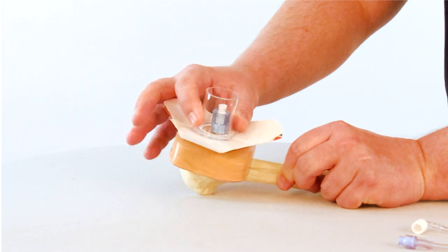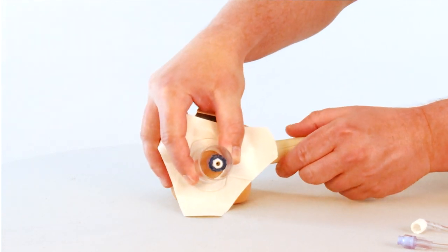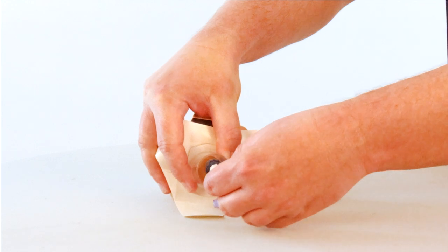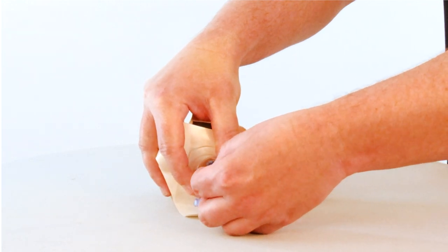Once I.O. access has been established, a stabilizer assembly device with a cylinder design is intended to protect the catheter from dislodgement.